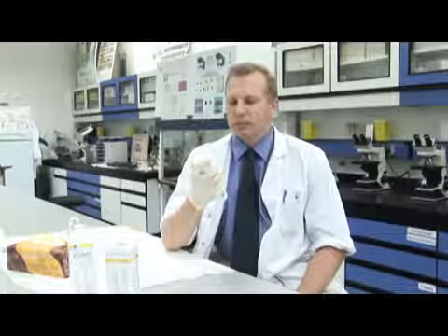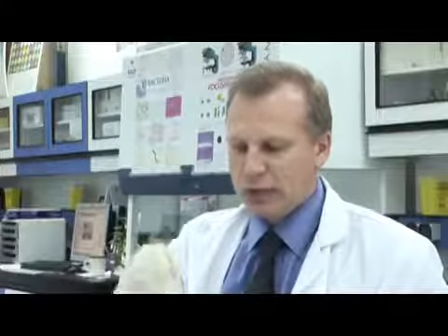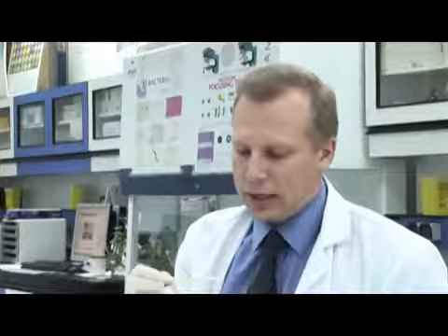Hello, today I'm going to talk about the urinary dipstick test. This is a very useful and rapid test that's used routinely in medical labs around the world. Basically, the test consists of a series of strips, special paper that's been impregnated with various chemicals that will react with other chemicals in urine to tell us about certain diseases such as diabetes, if the person's got an infection, and if the pH of the urine is abnormal, and other things.